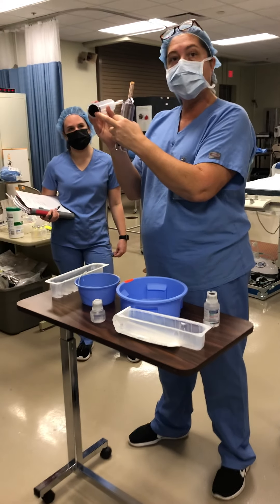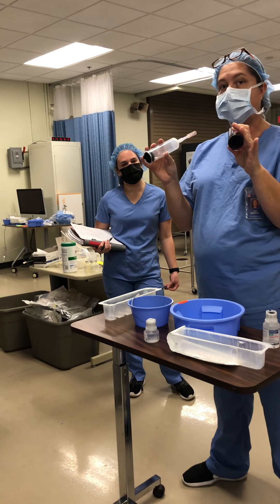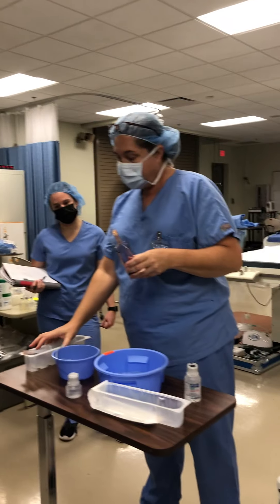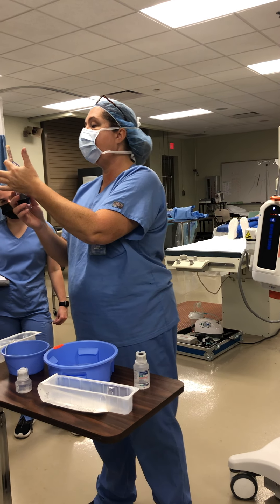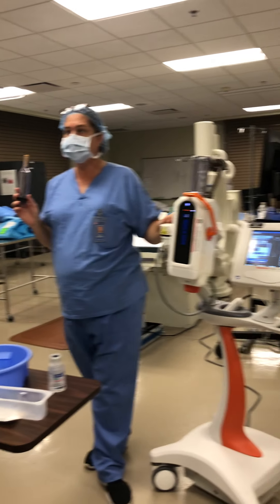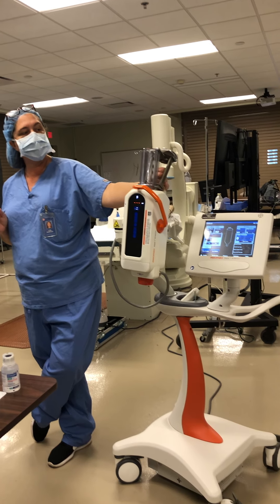The plunger is all the way down at the bottom, and that's how it will be when you open it up. With this one being the top load, it has this little raised area right here with a little arrow. Going back to this — this little thing right here is a warmer.